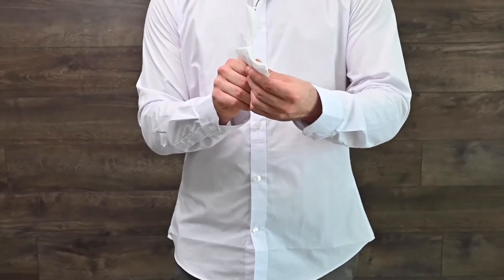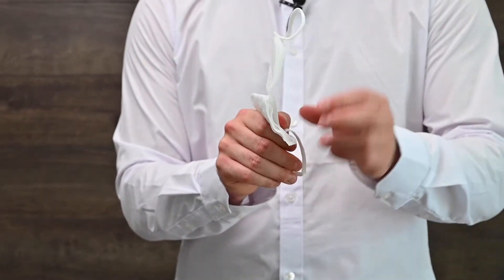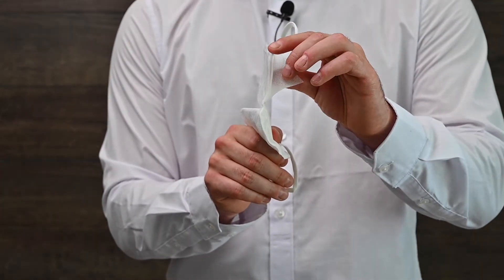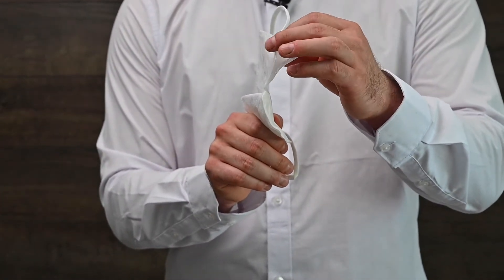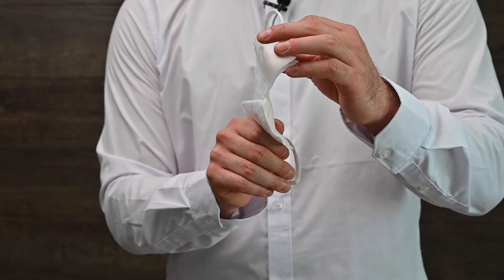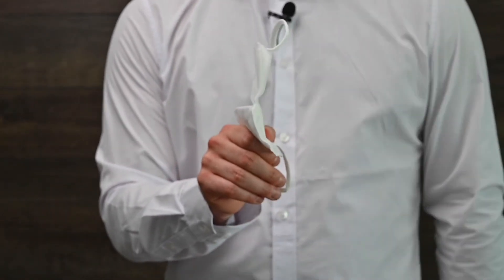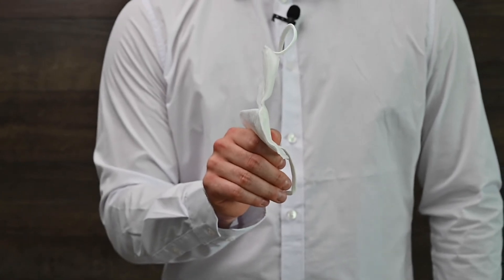The efficacy standard for KN95 masks is that it's supposed to be five layers. So if you look here, this is one of the masks — you open one, two, three, four, five. So it's five layers of protection.